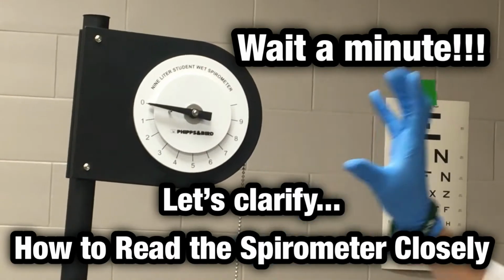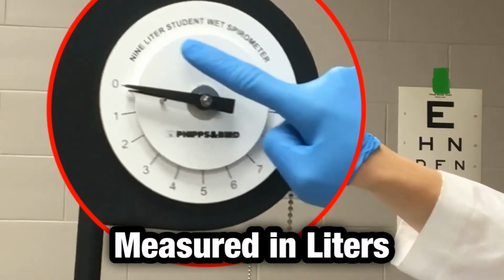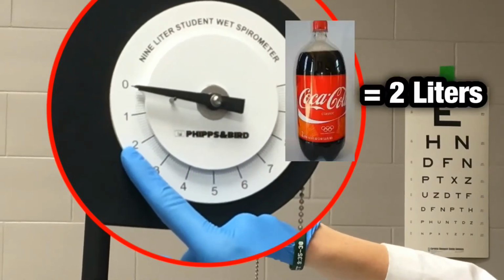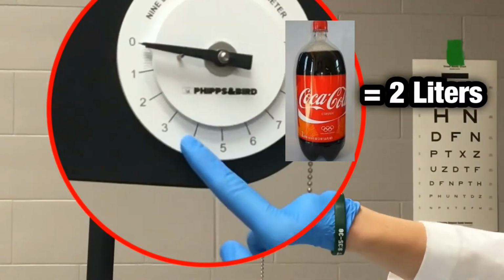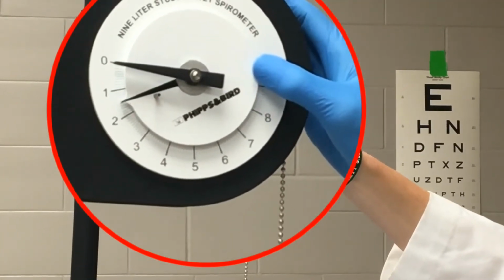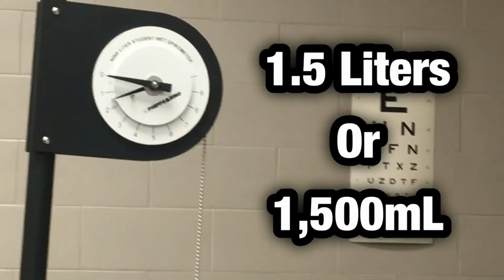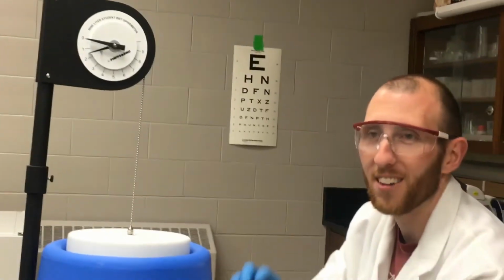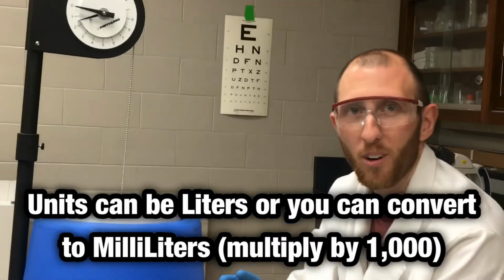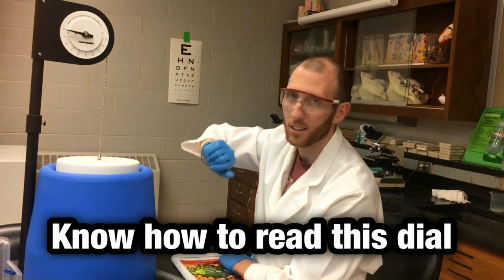So it's really important that you know how to read this dial. For example, this is measuring in liters. So this is 1 liter, 2 liters, like a 2 liter of pop, 3 liters, 4, and so forth. So if the dial is pushed to, let's say, halfway between 1 and 2, that's 1.5 liters or 1,500 milliliters. Be able to figure out what the units of this scale are, liters or milliliters.